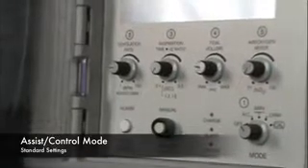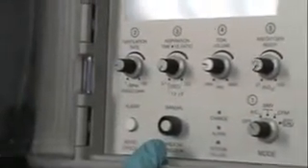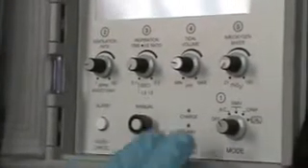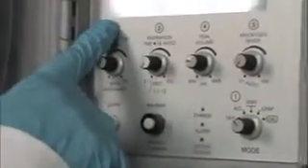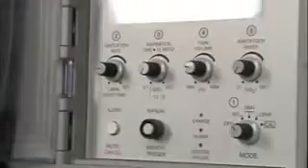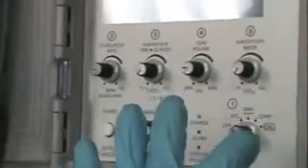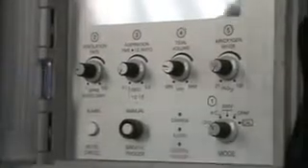When we put a patient in assist control, that means we're going to set a tidal volume and a respiratory rate, and the ventilator will deliver that rate and volume over the course of 1 minute. Right now the ventilator is set to give 12 breaths a minute with a tidal volume that we set at 500, and it will deliver that volume and rate to the patient. If they're breathing spontaneously on their own, they can trigger a breath whenever they want. That's why it's called assist control.